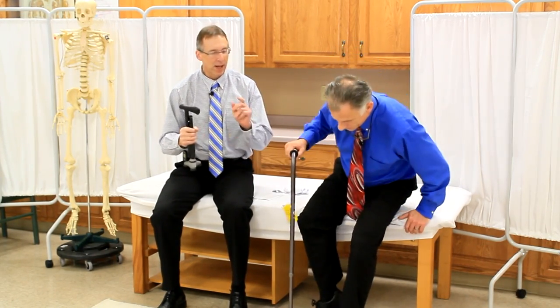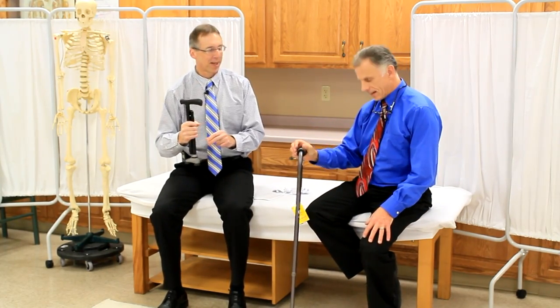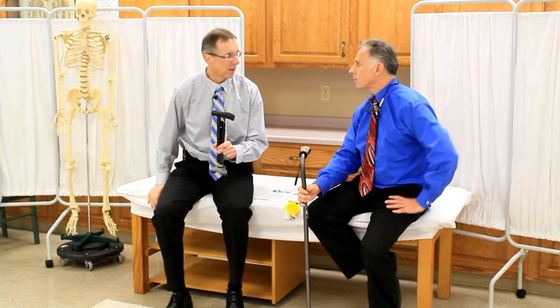Today we're going to talk about — we've got a battle going on here. We're going to go the Hurrycane versus the Hugo, to see which one is better because a lot of people are asking about these and we want to give some advice.